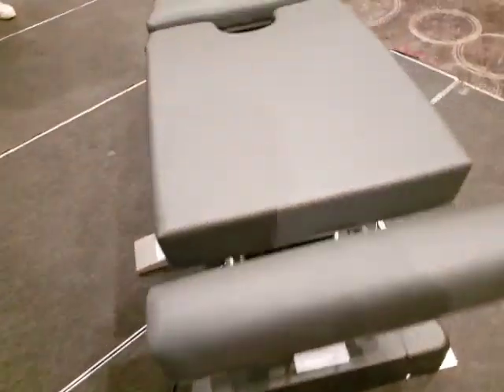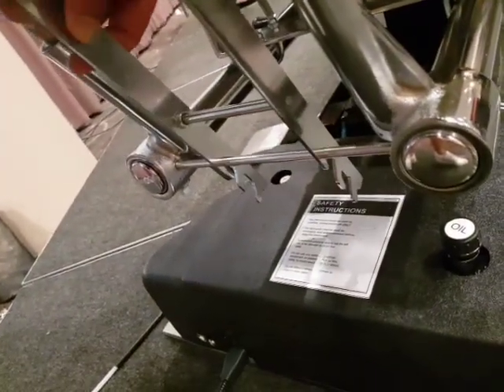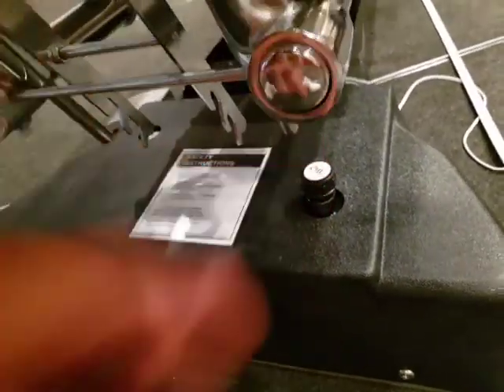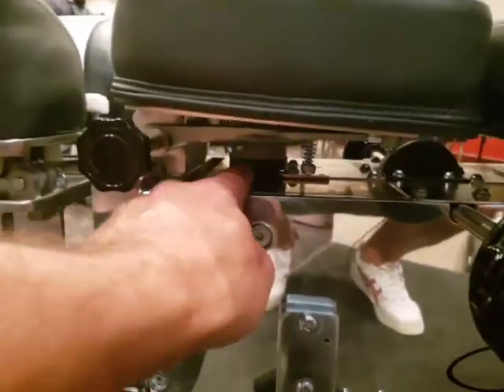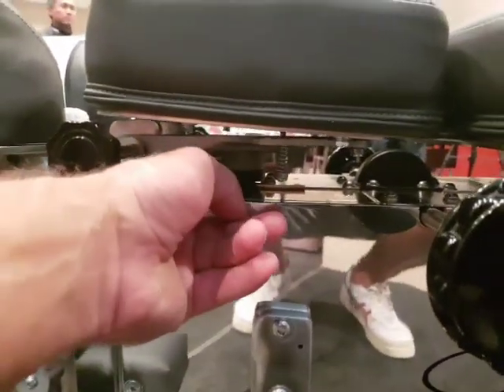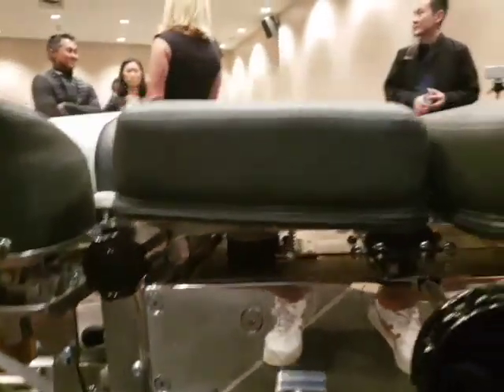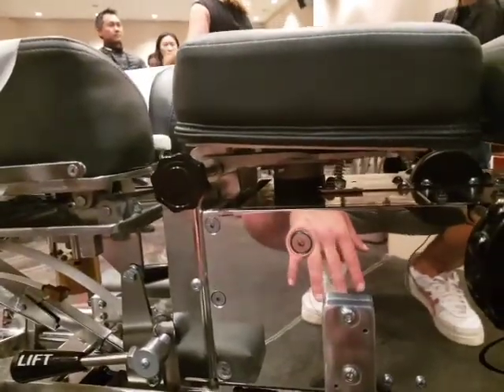The ankle rest raises and lowers, and on the side you'll see hooks that sit onto the bar itself. The oil at the bottom will not need topping up or changing. On very rare occasions, go underneath the table when you first get it, find the little square bolts, take them all the way out — they've already been loosened — and put some thread locker on them, then screw them back in. Don't ever over-tighten them or you'll strip the thread.